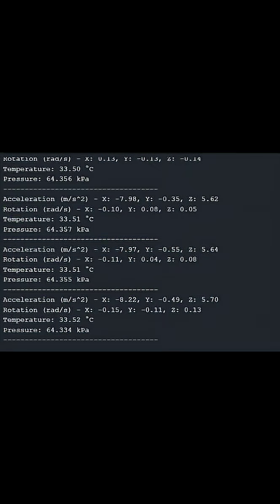Real-time feedback shows three key values: Degree of Motion for strength rehabilitation, Pressure for finger rehabilitation, and Body Temperature using the Seeed Studio High Accuracy Sensor. Tracking temperature is vital, as neuromuscular and post-stroke patients can overheat during prolonged sessions. If it crosses a safe limit, the system can warn the therapist, reduce the game difficulty, or allow cool-down breaks.